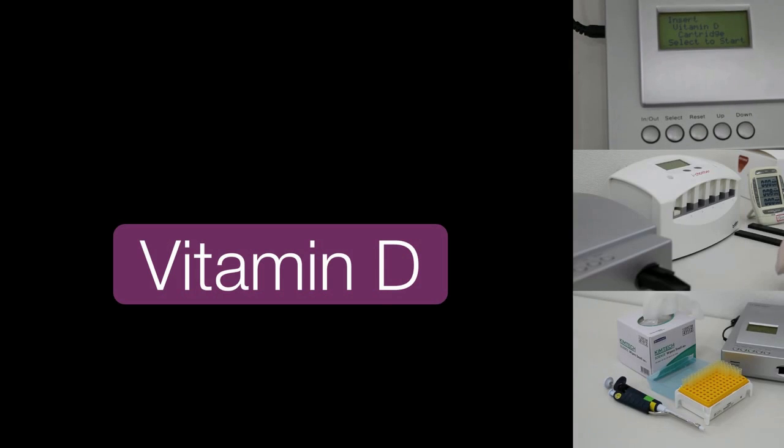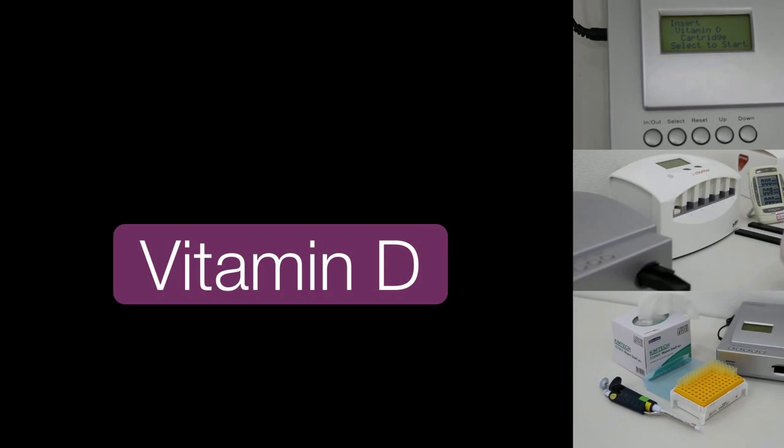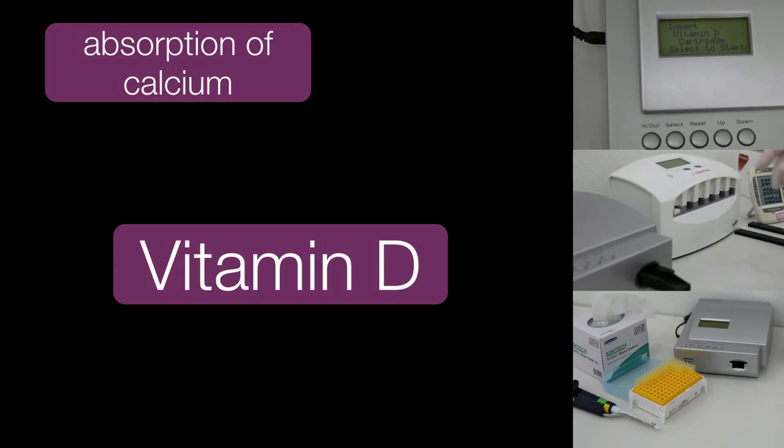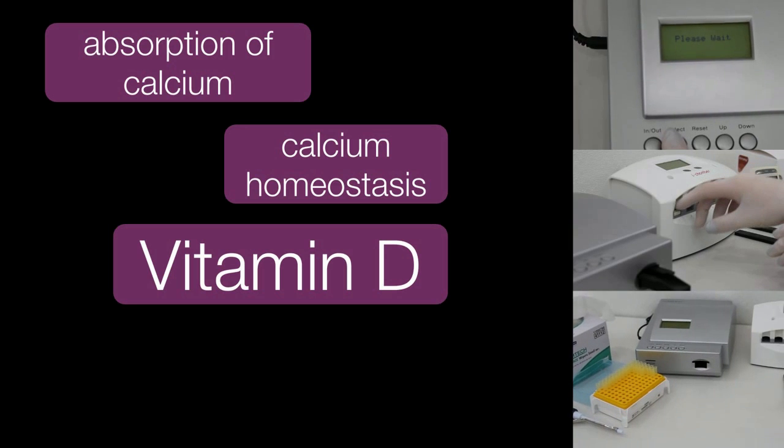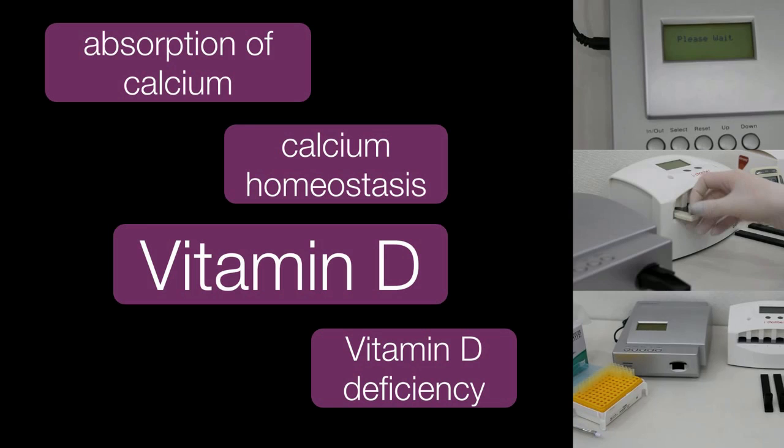Vitamin D from diet or dermal synthesis from sunlight is biologically inactive and is a fat-soluble steroid hormone involved in the active intestinal absorption of calcium and in the regulation of its homeostasis. ICHROMA's vitamin D test can be used to diagnose vitamin D deficiency.